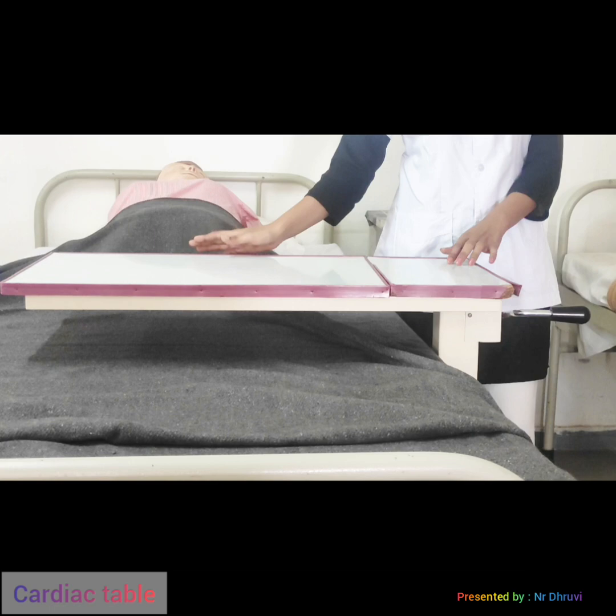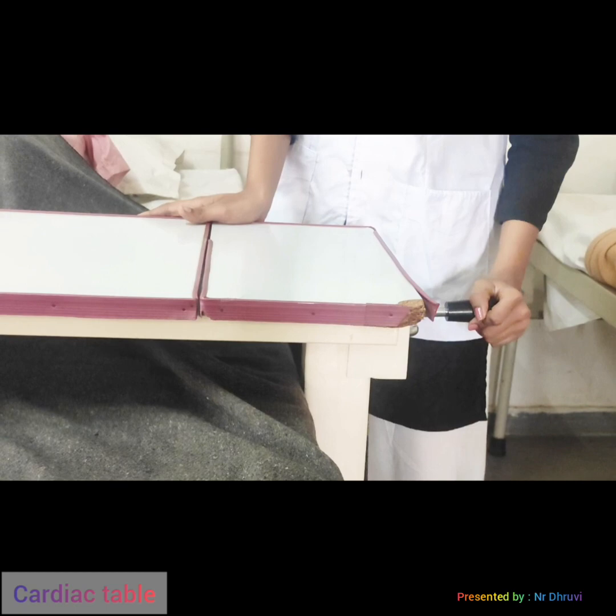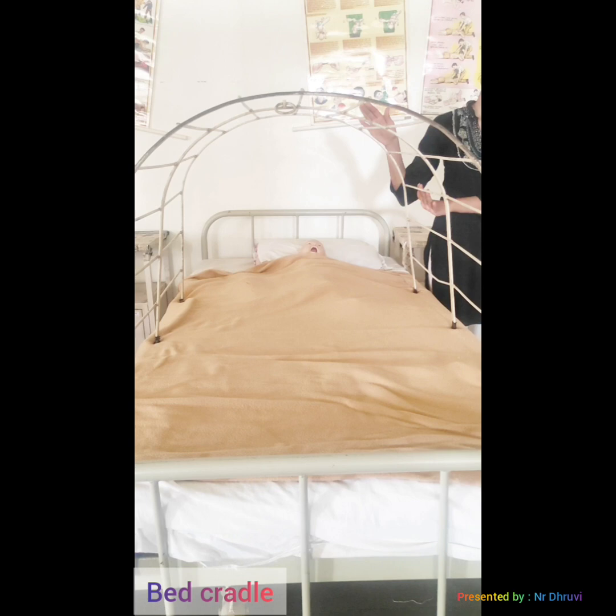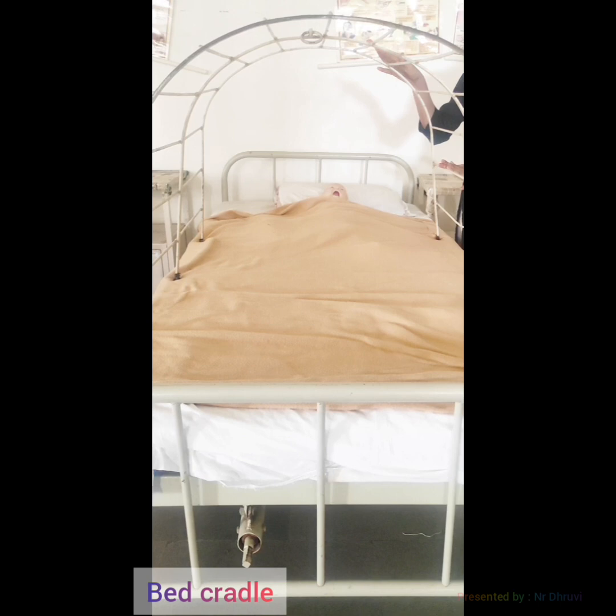The second device is the bed cradle. A bed cradle is a comfort device designed to keep the top bed covers away from the feet, legs, and abdomen of the patient. It is especially used for burn patients.